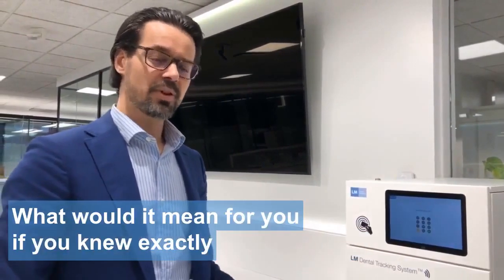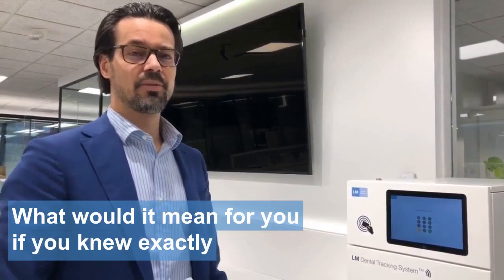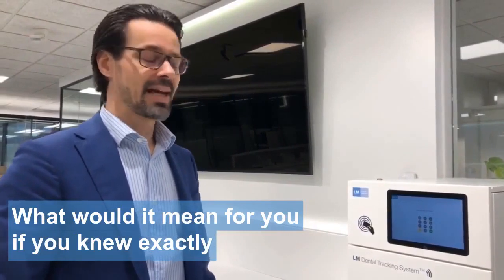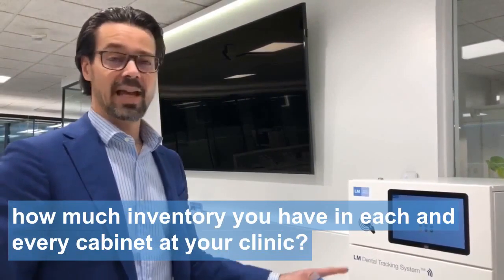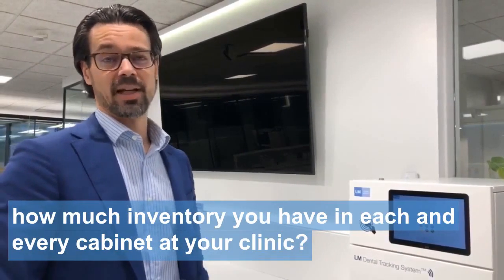What would it mean for you if you knew exactly how much inventory you have in each and every cabinet at your clinic?